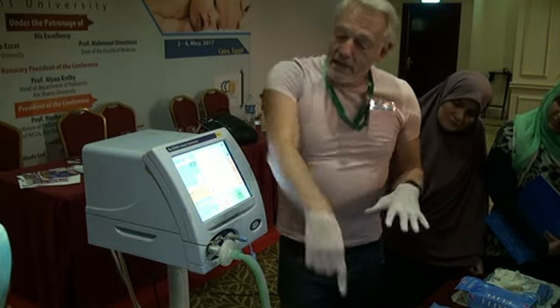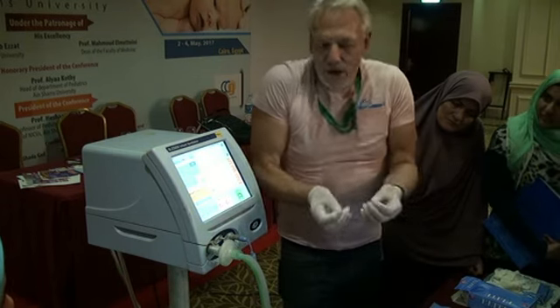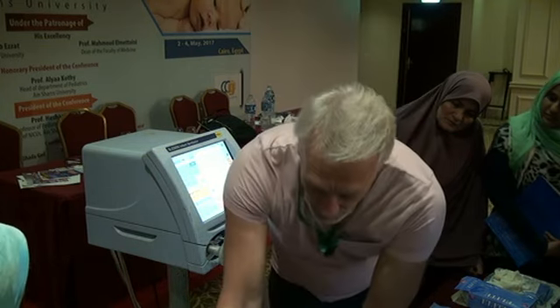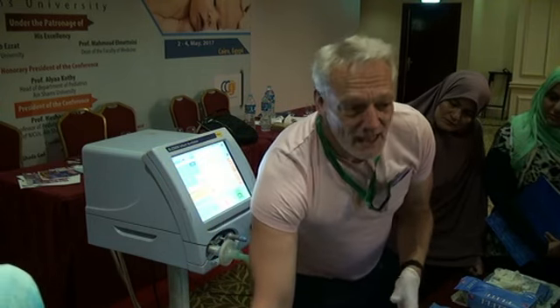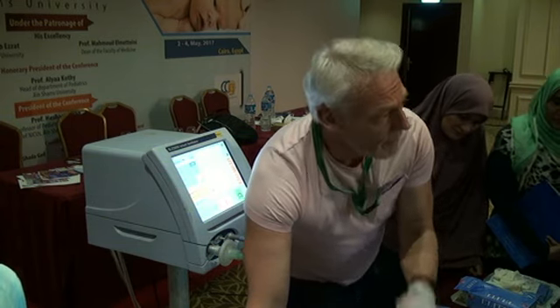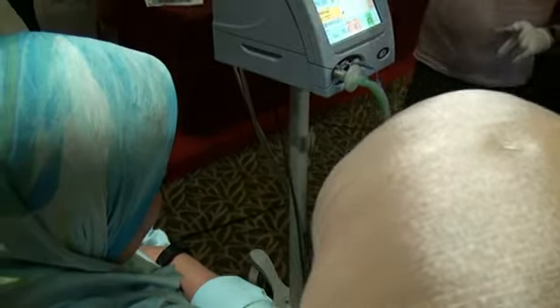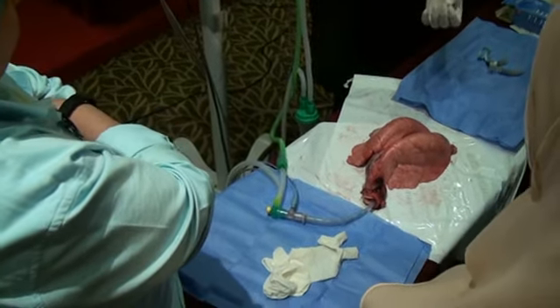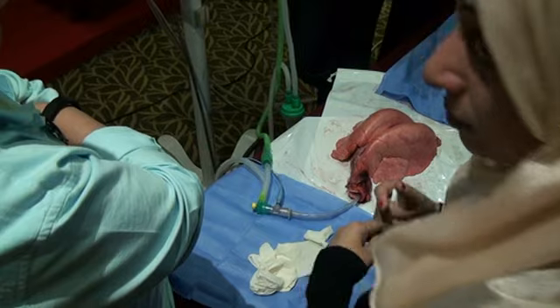So these lungs, fortunately, are very, very compliant. Unfortunately for me, because I like to demonstrate really difficult lungs, these lungs are very nice. But if I'm now going to suction this baby, this is what's going to happen inside to the baby. So that's what's going on, and you're suctioning the baby, and the baby starts to desaturate, and the nurse goes, well, it was just a quick procedure. Now, these lungs are very compliant, but look at the length of time it takes to get back.